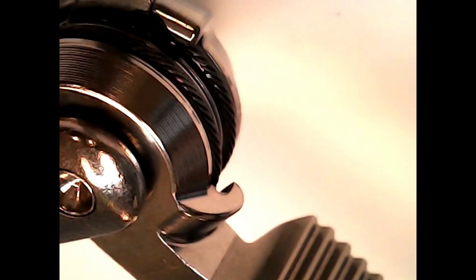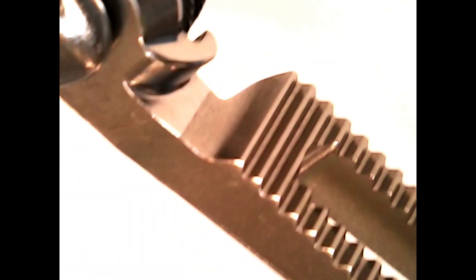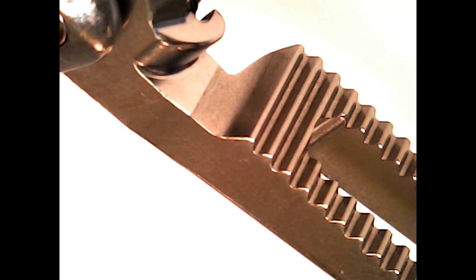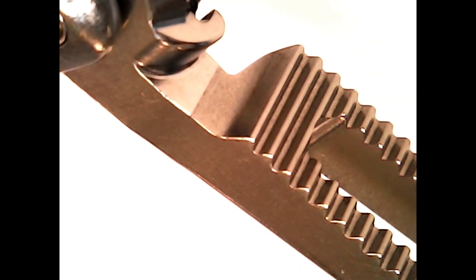You want to inspect every portion of this distal tip because there's a lot going on. There's a lot of moving parts there, there's a lot of connectors, so you definitely want to spend a good amount of time making sure that that's nice and clean and that it is functional.